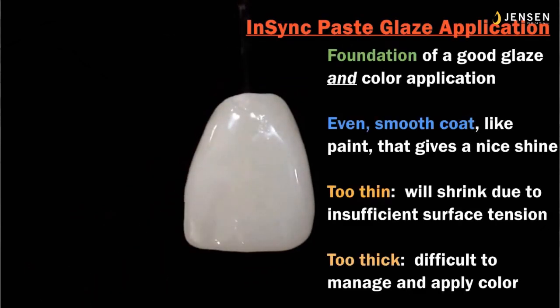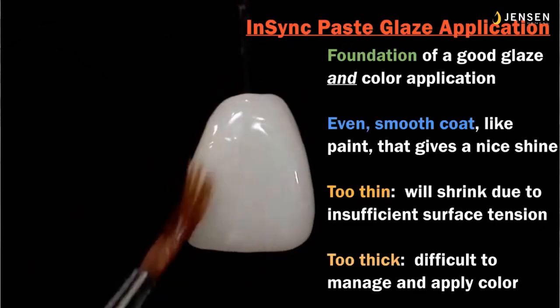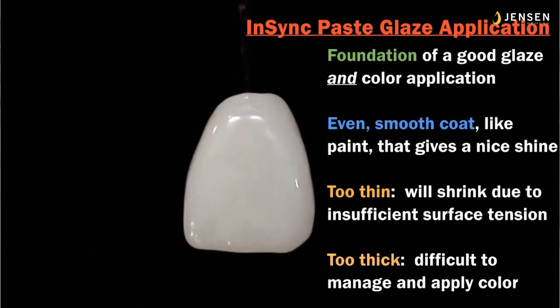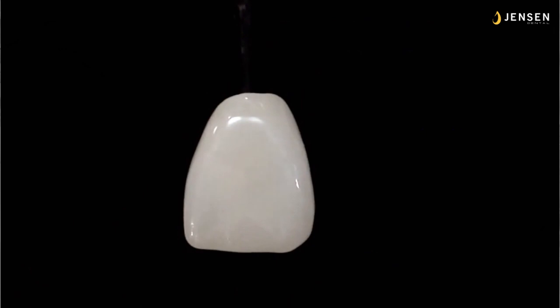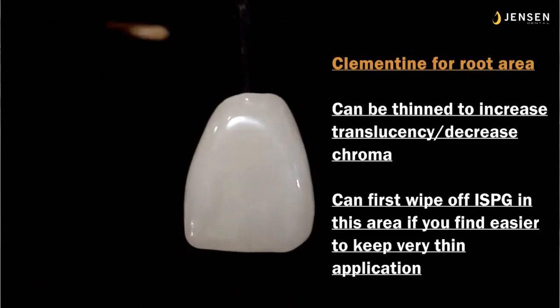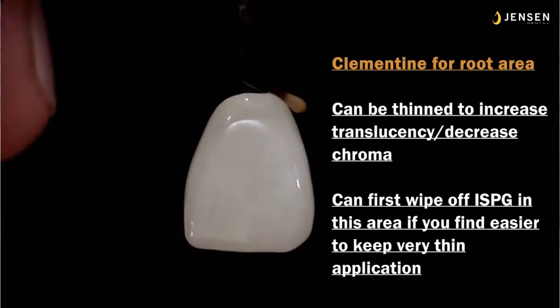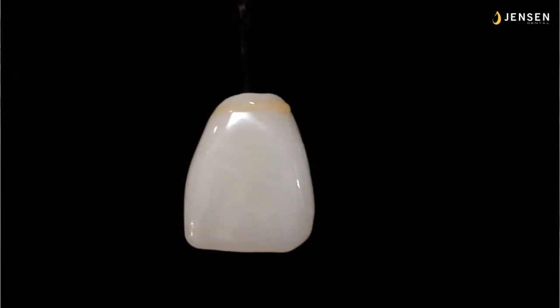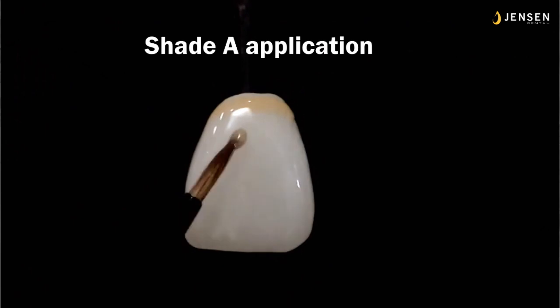I want to put a thin coat of the in-sync paste glaze on it, the foundation of a good glazed color, and you want an even, smooth coat. And I put a little clementine in the root area. Now you can wipe off the paste glaze in this root area if you want to apply it right there so you have like a boundary, or you can apply it right on top of the paste glaze. If you want it more translucent, just thin it down a little bit. The paste glaze will hold it in place.